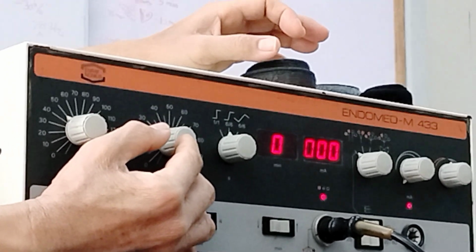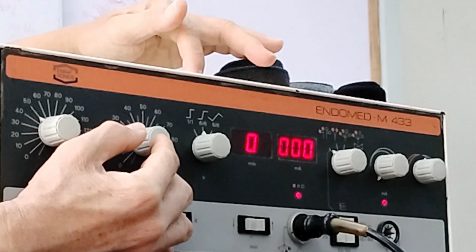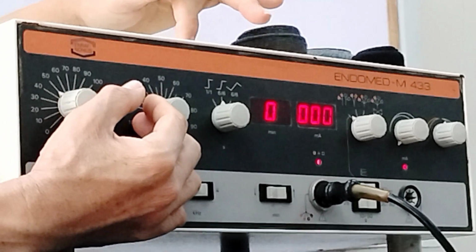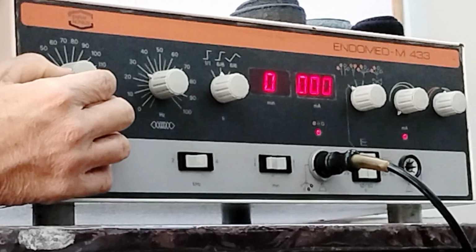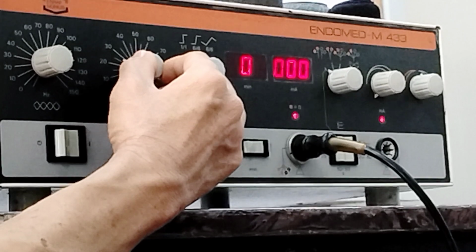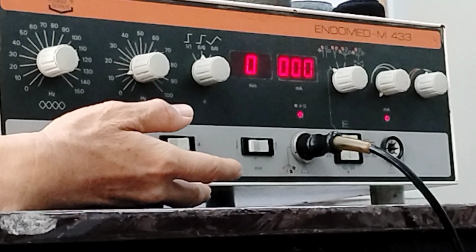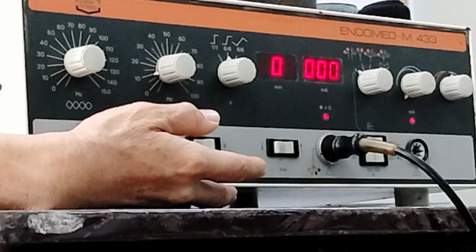So here, if ever you encounter the term rhythmic, like in our lecture, 90 to 100 Hz rhythmic, how do you set that if you choose 90 to 100? Therefore, you place this to 90, which is your base frequency or starting frequency, and then the shift frequency or spectrum frequency, you place that to 10. Therefore, because from 90, it will further go up by 10, it will reach 100. So you have 90 to 100.